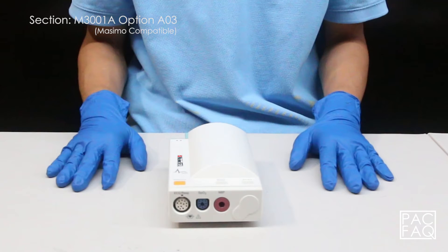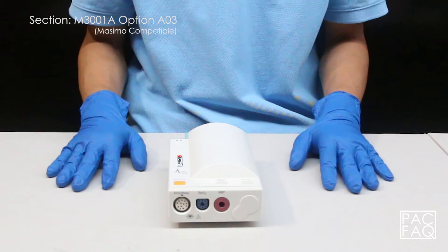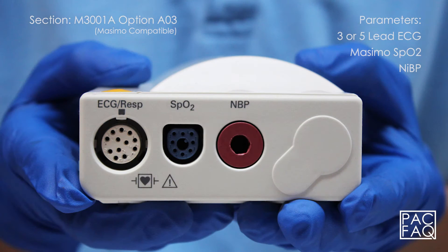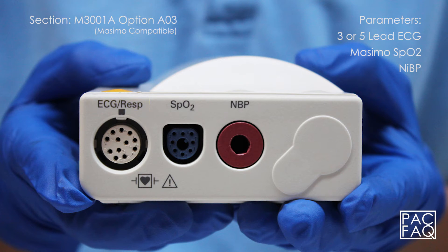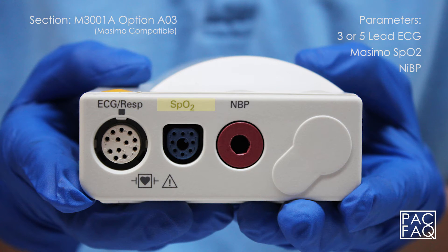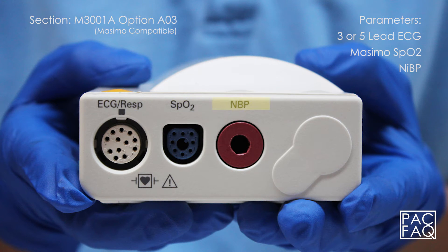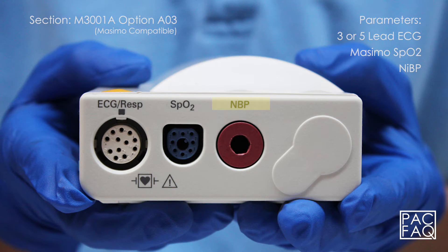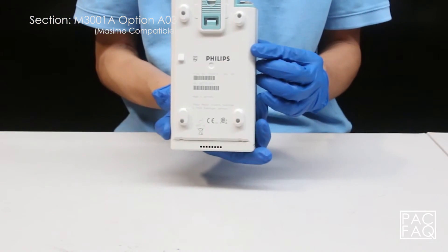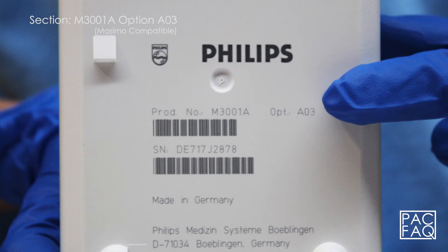Here we have option A03 standard. This unit comes with parameters 3 or 5 lead ECG, Masimo SPO2, and non-invasive blood pressure. The product identification and serial numbers are located on the bottom of the unit.